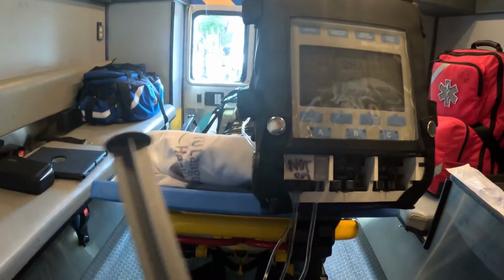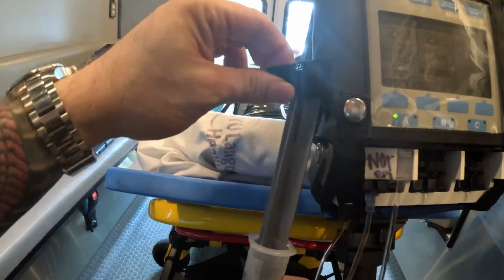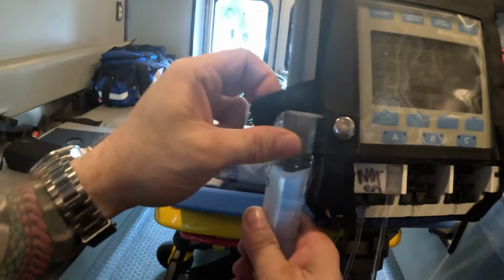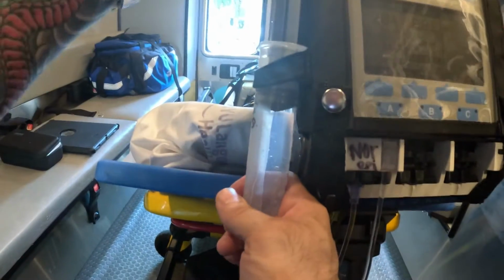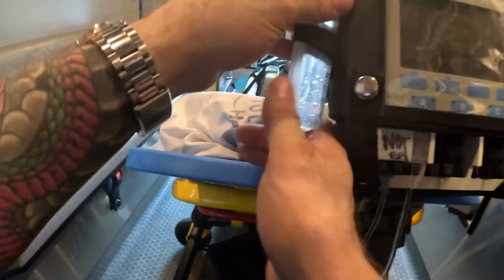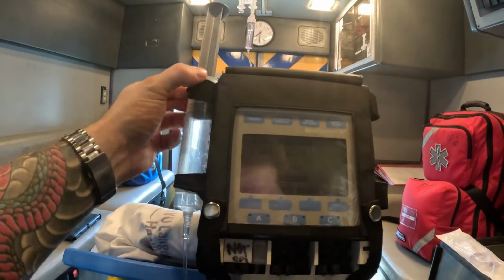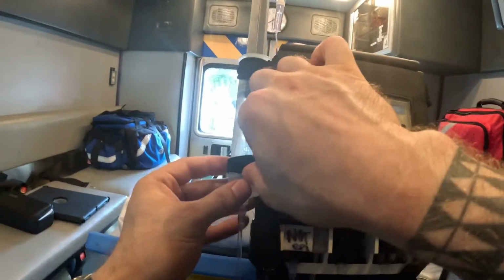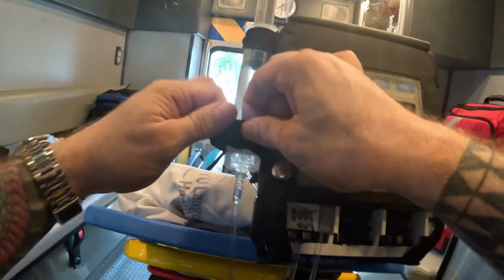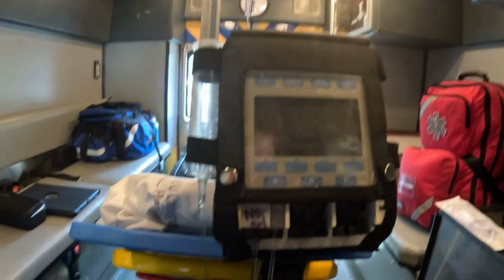What I do is I basically thread my plunger, my syringe here. You wanna make sure that once it's in, nothing is obstructing the movement of the plunger. So what I mean by that is this is connected like so, and this can move freely. Adjust your straps so everything is secure. So this case is actually made to hold syringes, so don't let anyone tell you otherwise.